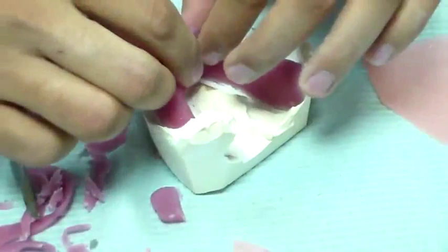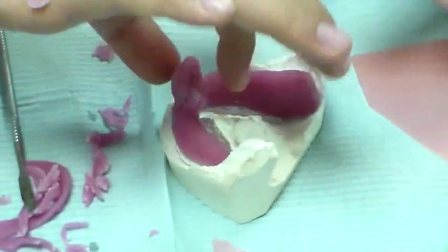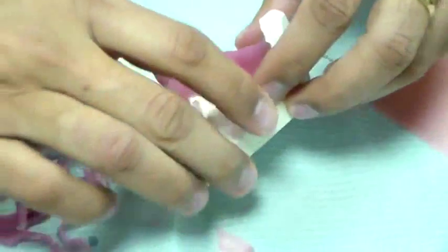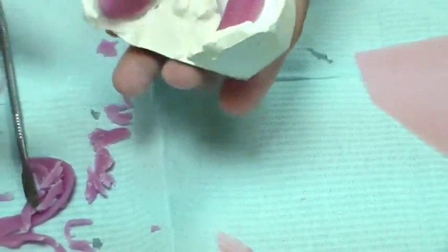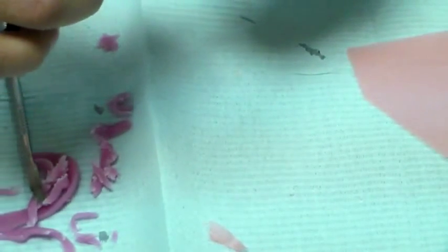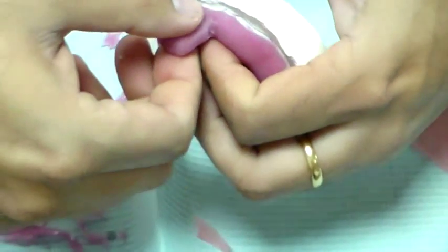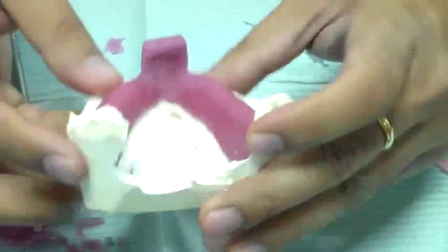This is my handle. Like before, you want something to hold it by — so you're going to hold it like this. You need something here that is grooved this way, and you want something on the inside that's also grooved. So you have a groove on the outside like this, and from the inside you have an inner groove like that. So that's your handle.